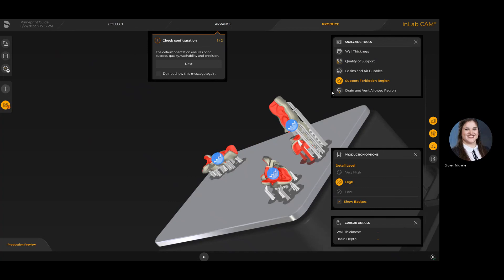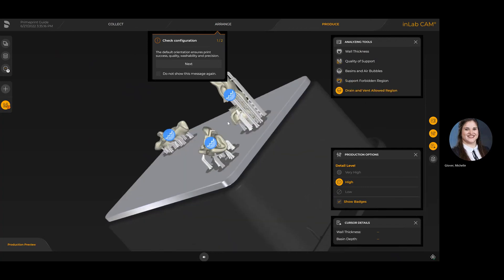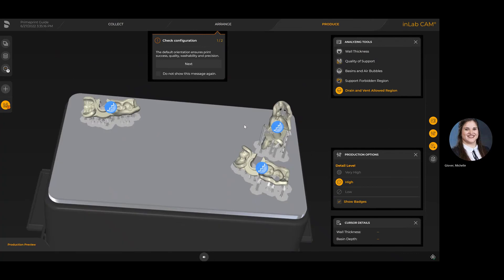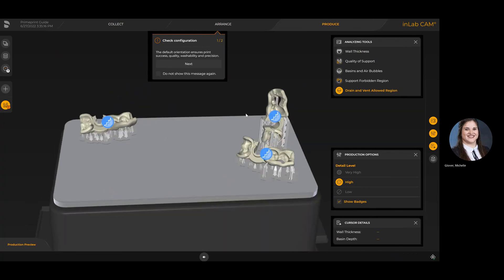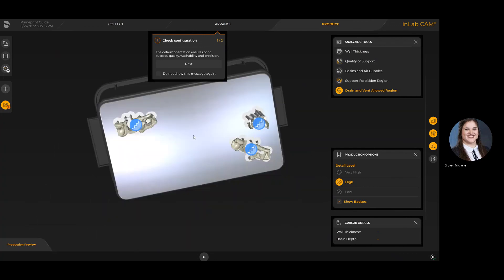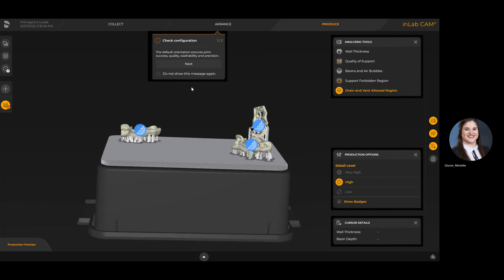We can see here supporting forbidden regions. Obviously when it comes to optimizing the footprint with the height, you do lose a little bit of ability because it might not have a choice but to support an area where the surgical site is happening, so that might be a concern prior to printing that you might want to consider in terms of repositioning or moving those supports when needed.